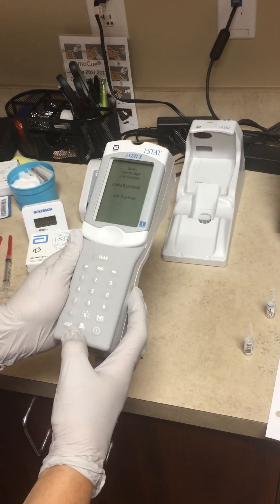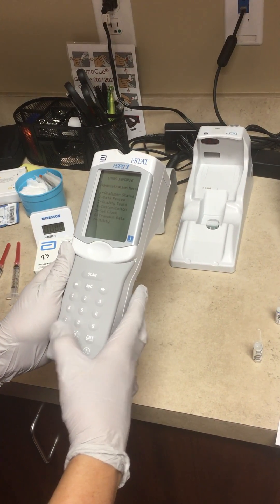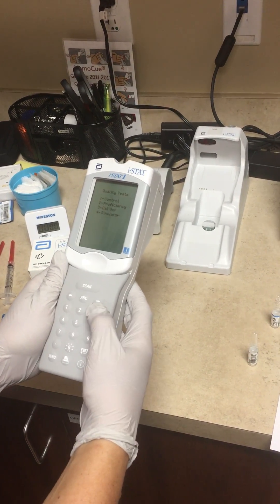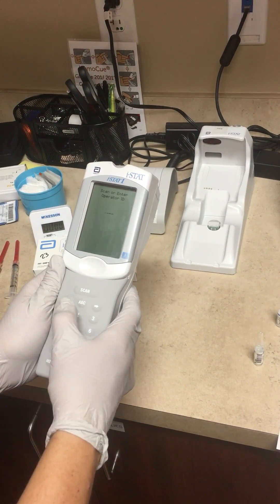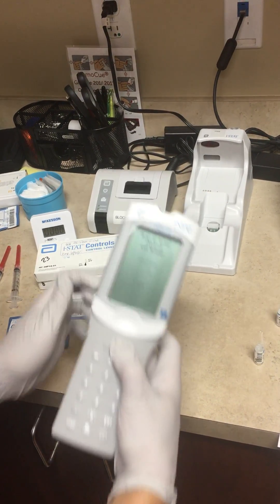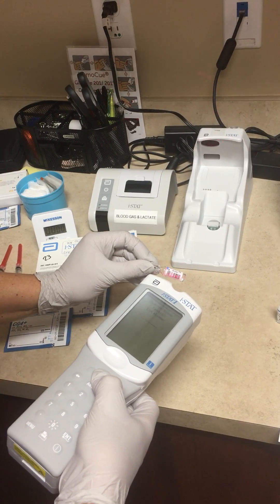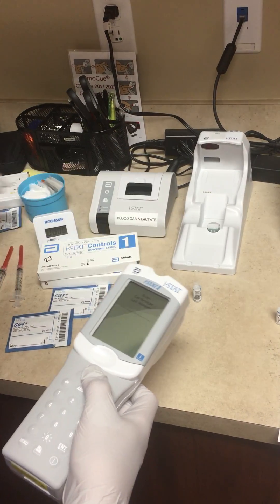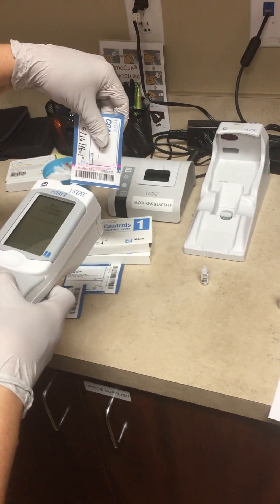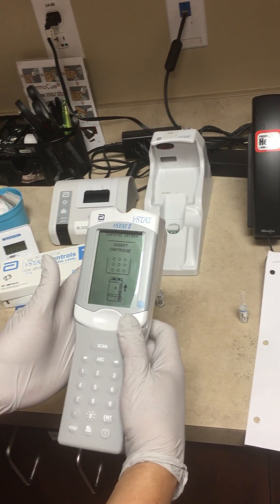To bypass this, I'm going to go back and try it again. One is Control, Operator — enter the lot number by scanning the barcode on the bottom. Now it's telling you that it's ready for the cartridge.